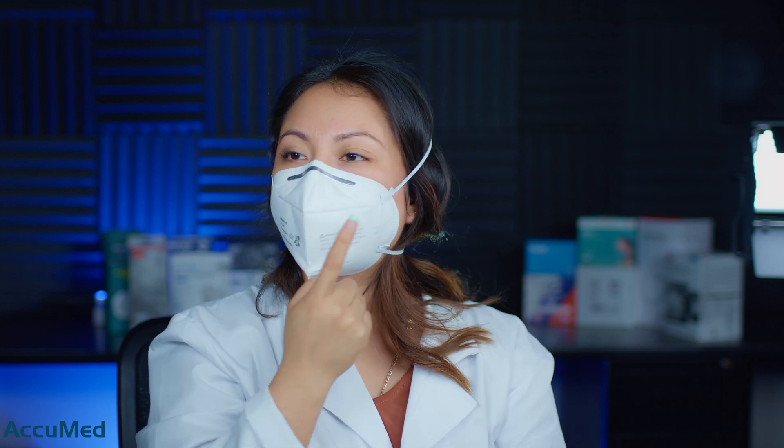It smells like cinnamon as well. One thing I also wanted to mention is that the rubber headbands tend to dig into your face — it's digging on both sides of the cheek. The breathability isn't too bad; I don't feel like I'm suffocating, but it's also not the most breathable respirator I've tried on.